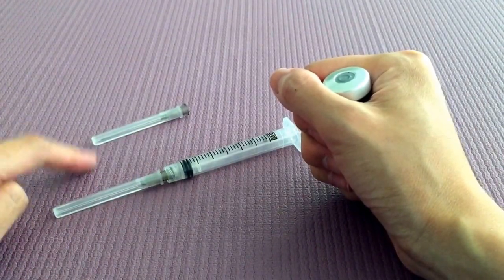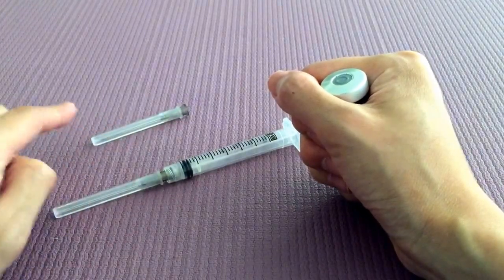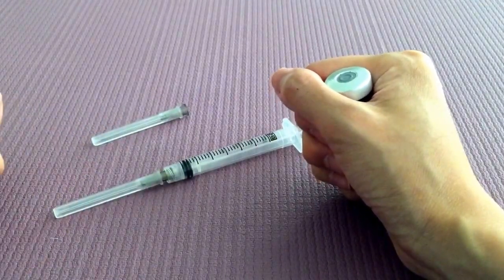So what I want to do is actually swap out the tips right before I do the injection so you have a nice fresh needle and it'll go in just nicely.